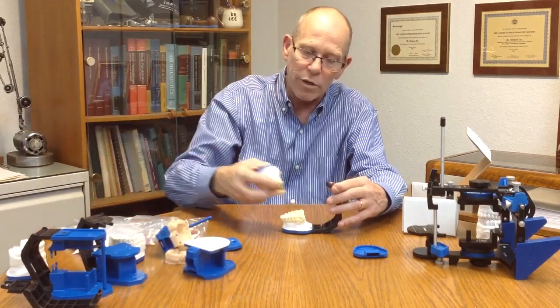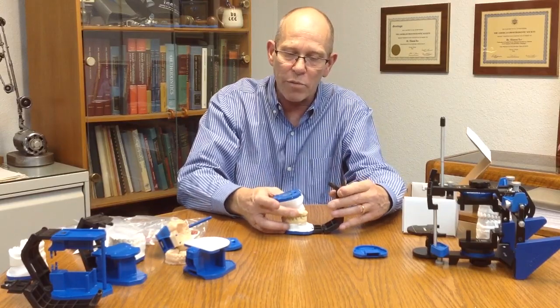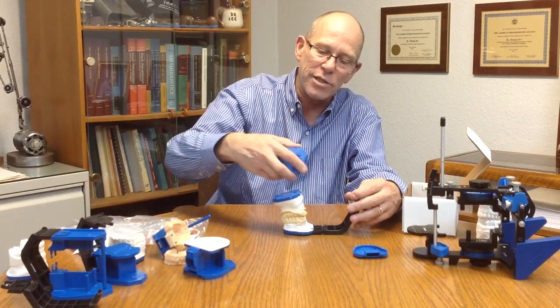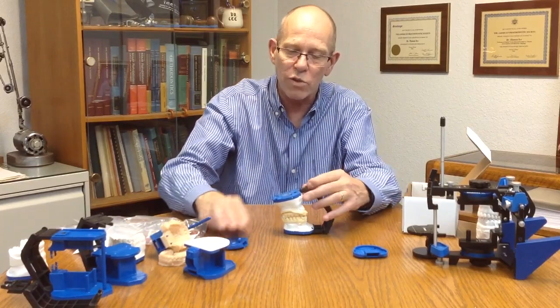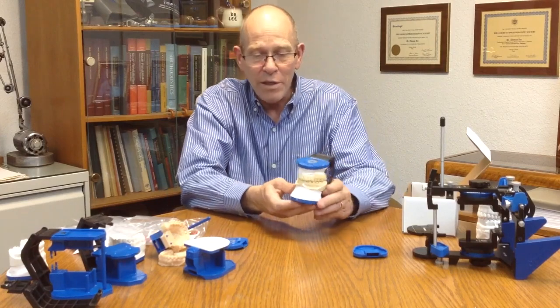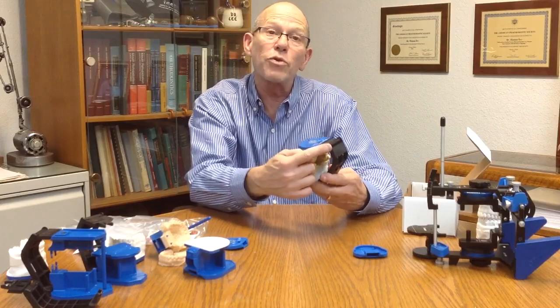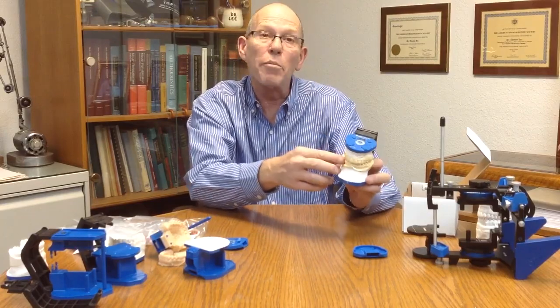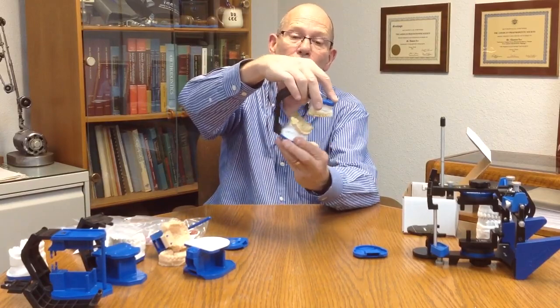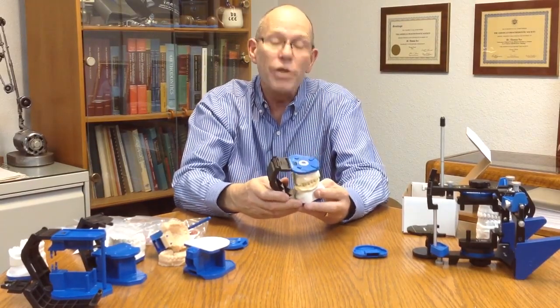We can add a model either with an interocclusal record or to MIP. We can again add a mounting plate to here and add some plaster to the model, swing this around to make a connection of the models to have standard functional mounted models to an axis of rotation for function to MIP for everyday dentistry, to create a better arc of rotation or opening and closing movement that should reduce adjustments in the mouth.